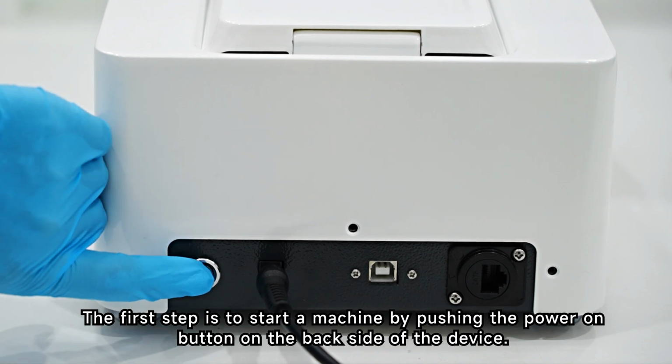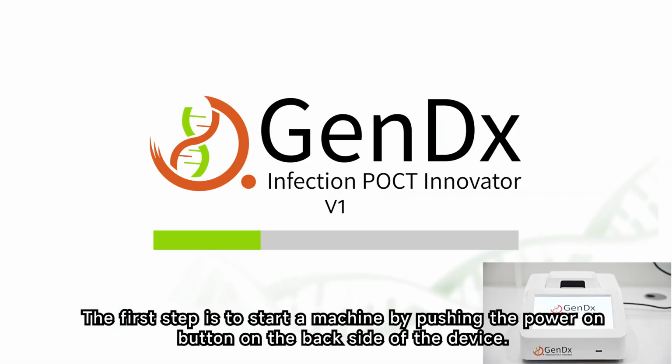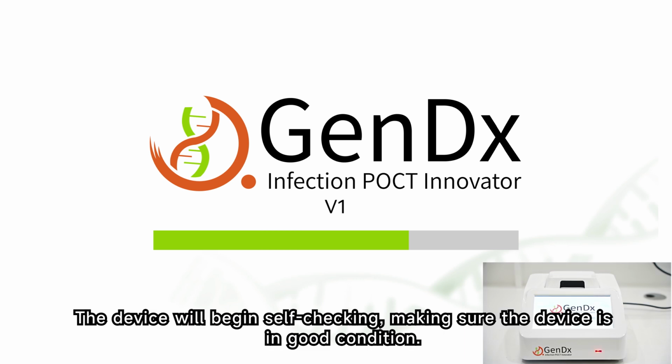The first step is to start the machine by pushing the power on button on the back side of the device. The device will begin self-checking, making sure the device is in good condition.